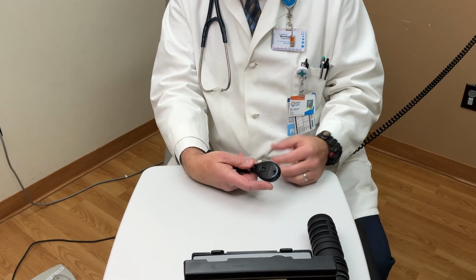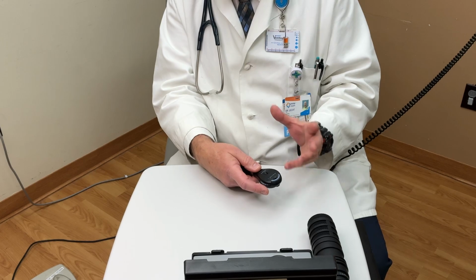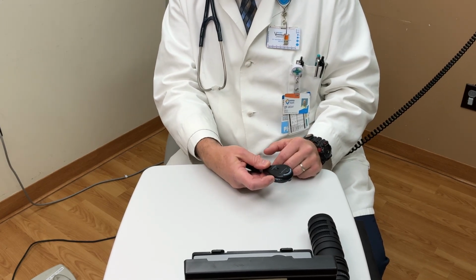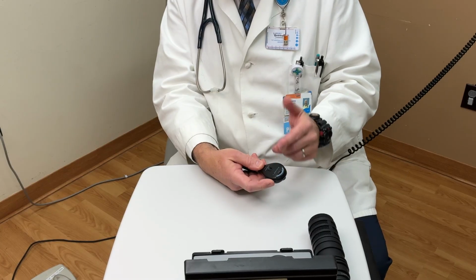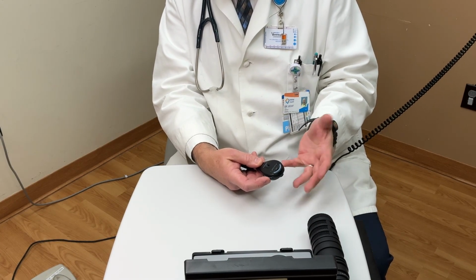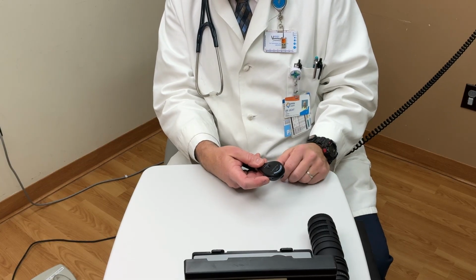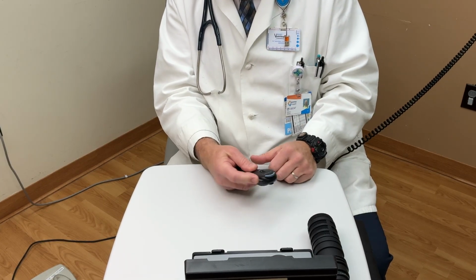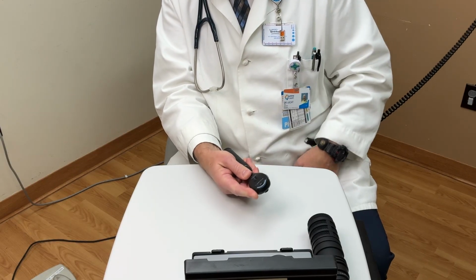And of course, acute things can happen, but one of the major mistakes beginners make is that they click through lenses very quickly. And so you need to click about 1 lens per second to give your own eyes a chance to say, okay, no, that's not as focused as it could be. Okay, next lens, and so on. Please don't click through a bunch of lenses all at once.